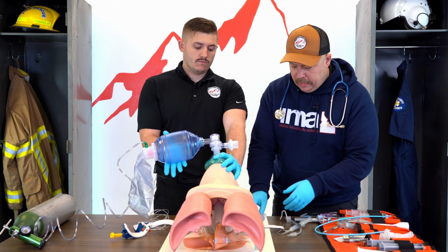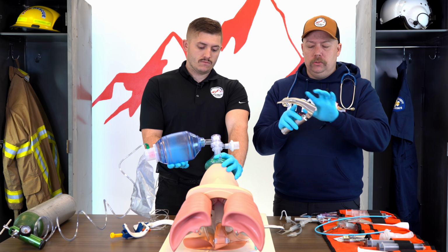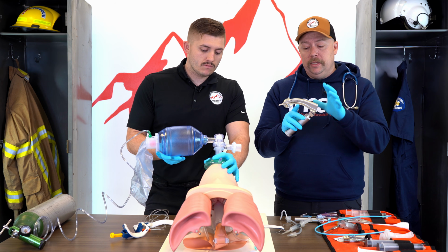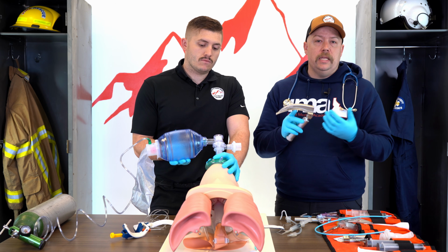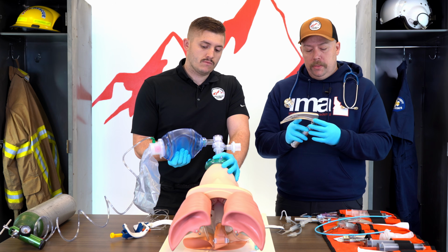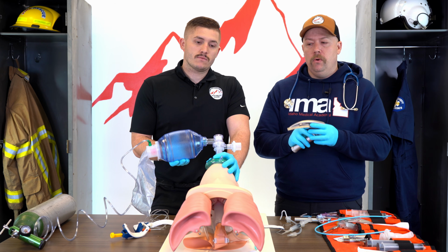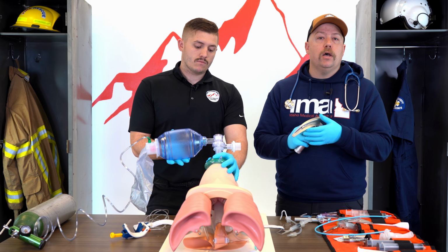We'll also take our blade. There are different actual blades. The handles are going to be all the same. The blades are going to be a little bit different. So again, your partner should tell you what blade they want. There's the Millers and the Macintosh, or the Mac. The adult sizes are like a 2, 3, 4, depending on which blade. So I would tell Cody, can you set me up with a Mac 3? That would be a Macintosh 3.